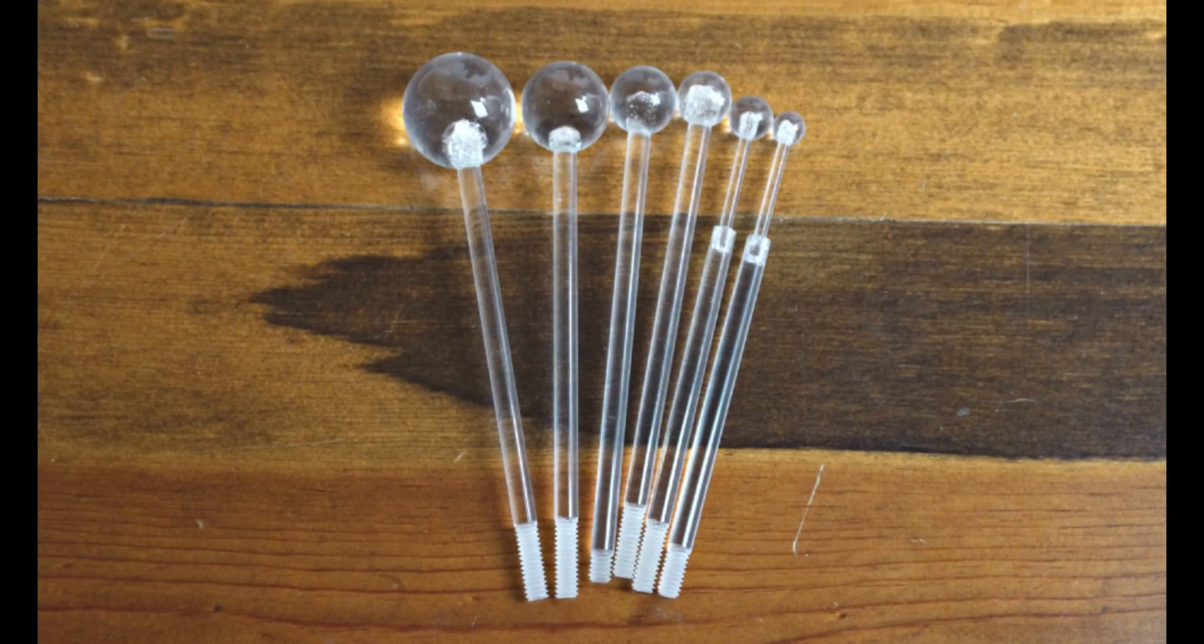So here we have our contrast spheres. The spheres are going to go inside the Phantom. I want to just go through real quick the sizes for the spheres. So from largest over on this side to smallest. Those are the spheres up there.